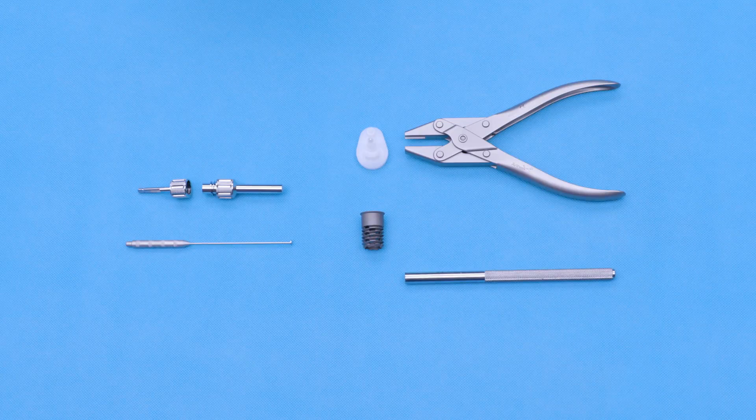This does not require a pilot hole to be created. It can be used quickly on the back table, utilizing a quick connect adapter. It has a more slicing cutting tip. It is available in three different sizes: six, eight, and ten millimeters.